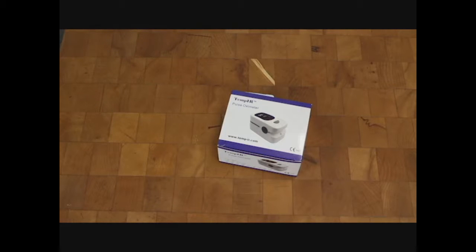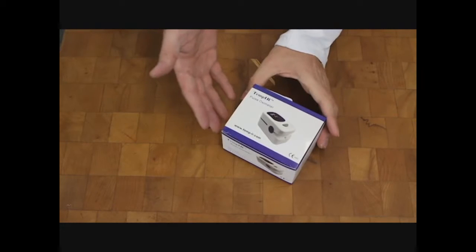Hi, this is Kodug and I'm here with the TempIR Finger Pulse Oximeter. This is a portable FDA-approved finger digital readout for blood oxygen and pulse sensor.